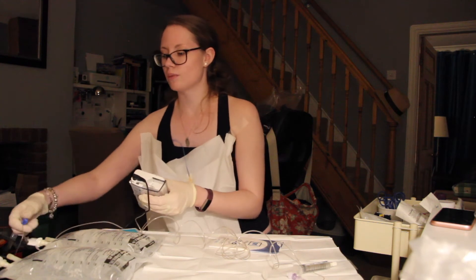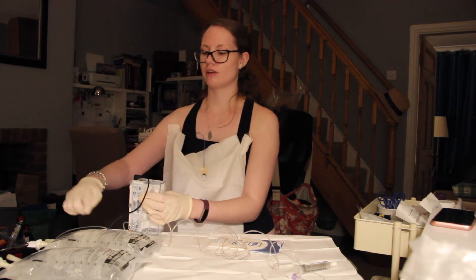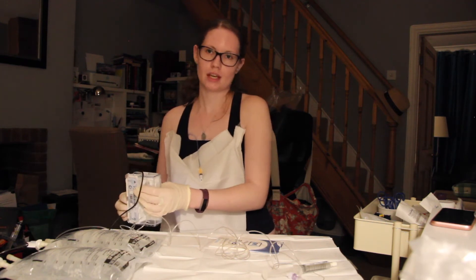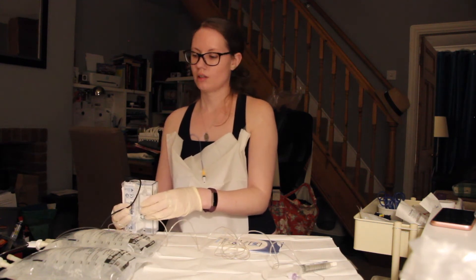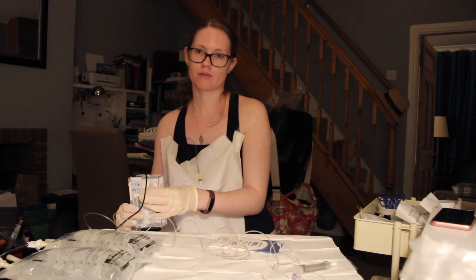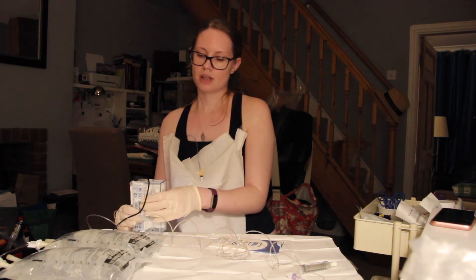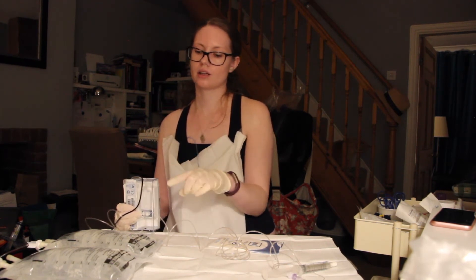Next thing we're going to do is open one of the clamps and press the purge button. What that does is drag the fluid through from the bag, through the pump, and fills the line with the saline solution. I have dex saline just because that's what my team decided was best for me. I get all my other electrolytes from my tube feed, so I don't need any additional electrolytes — it's just the fluid that I'm missing. I think the dex saline has something to do with less fluid retention because it's got less salt than a normal saline bag and a little bit of glucose.